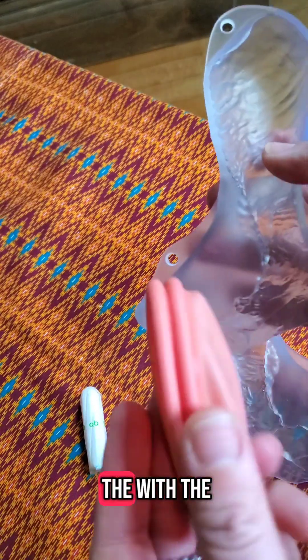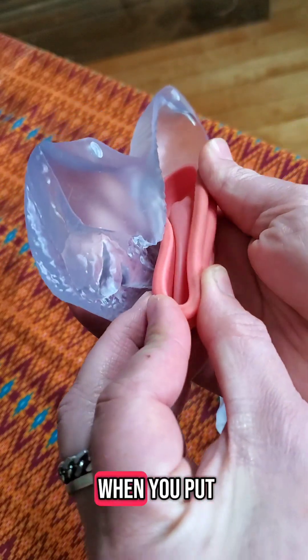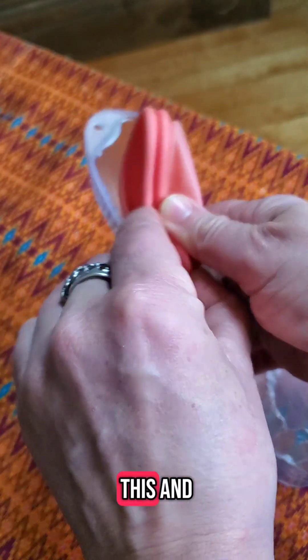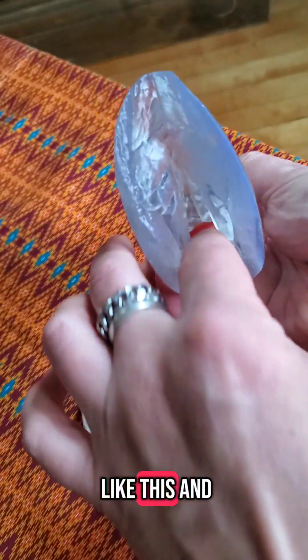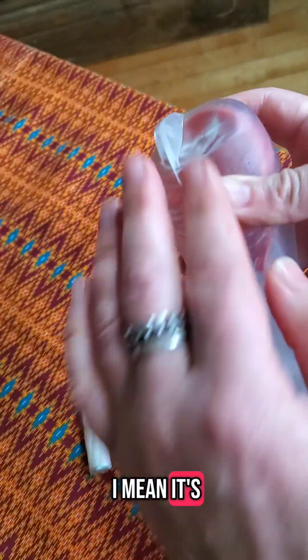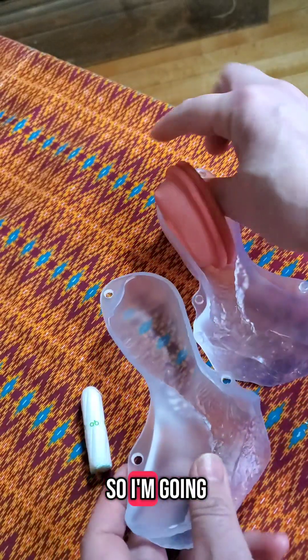You can also demonstrate with a menstrual cup — I use the Nixit one here. When you put it in, you place it like this, and that is how the blood will be collected. It's not perfectly demonstrated yet, but you get the idea.